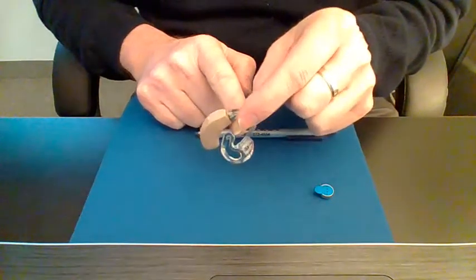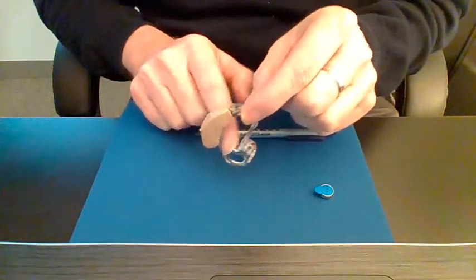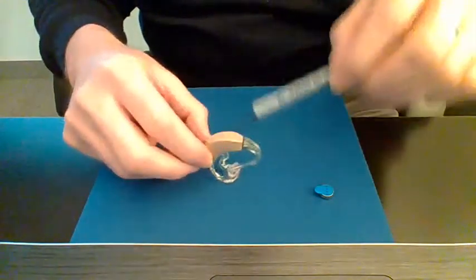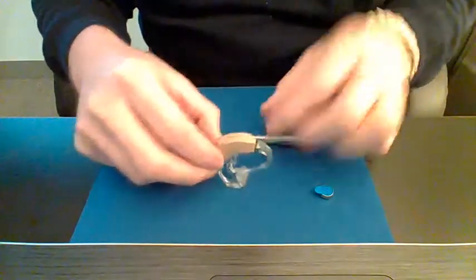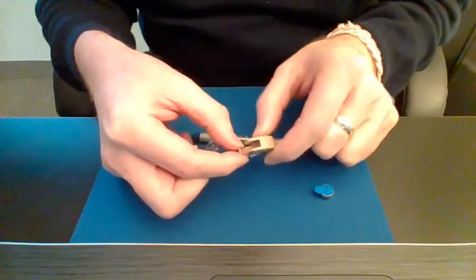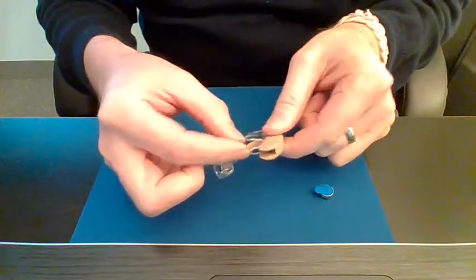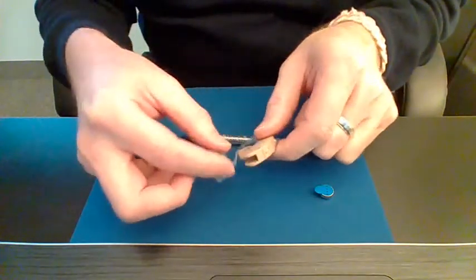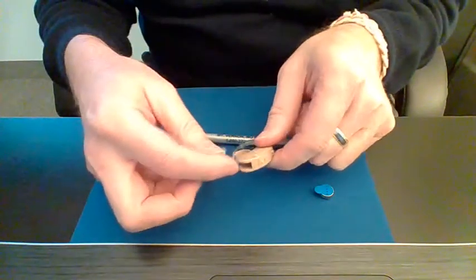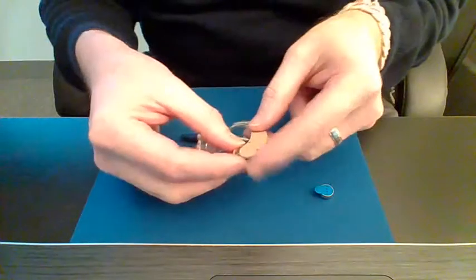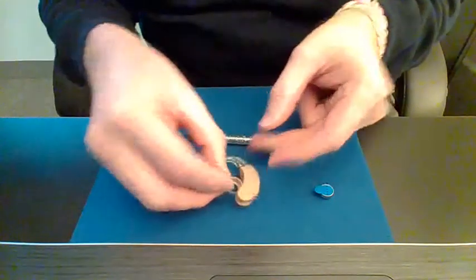Well then at the bottom, you've got a little door that pops open. Some of them pop open like this, or some of them may have larger openings, you know, little tabs or different things like that. But they open like this.